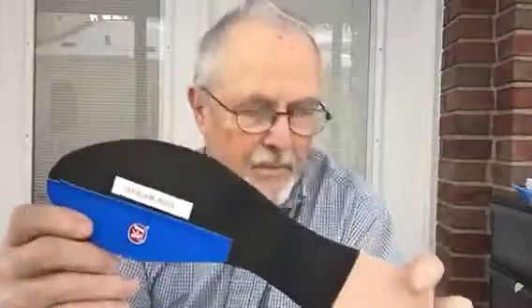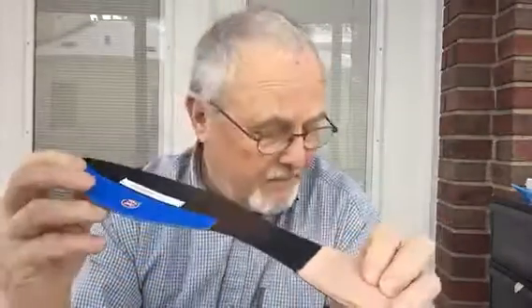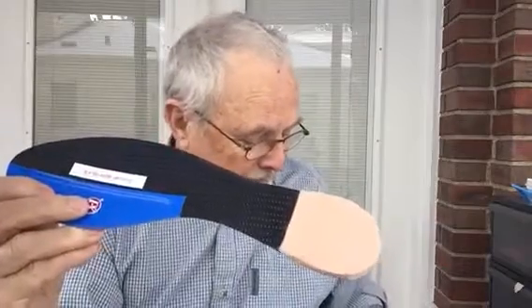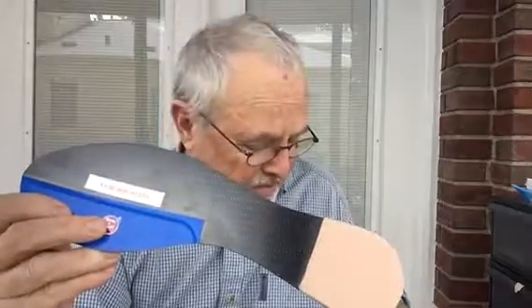It's Friday at Interbrace Company. We got one of my X1 Blade Pro models going to Nicholas in Bainbridge Island, Washington. Nicholas is a soccer player. He's got hallux rigidus and arthritis in his great toe.